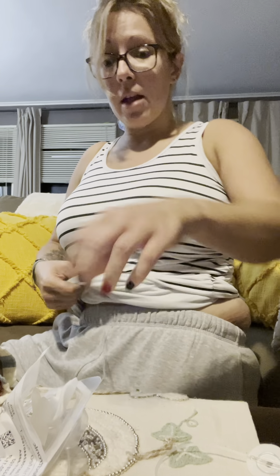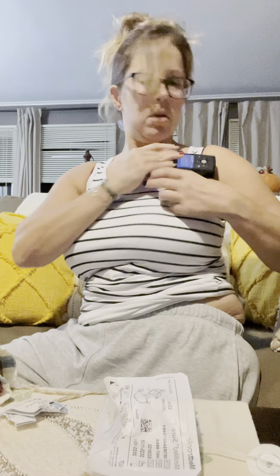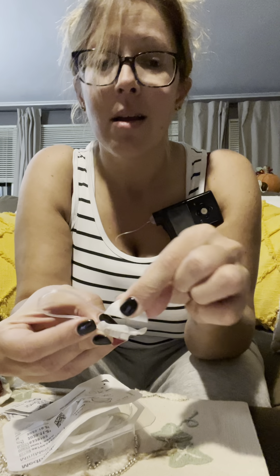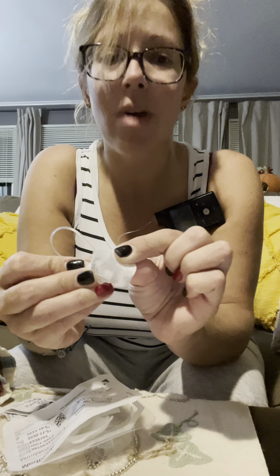This is the second sticky to make sure that you don't rip the metal, because when you rip the metal, it hurts. So I always stick this one up here, and that's it. You do not have to fill the cannula because it's already filled — it's metal — and we're good to go. When you take it off, slightly peel up one side, slightly peel up the other side, pinch them and pull straight up, otherwise you're going to bleed and it's going to hurt. I'm glad you got them and I promise you they're going to make a world of difference. Good luck, bye!